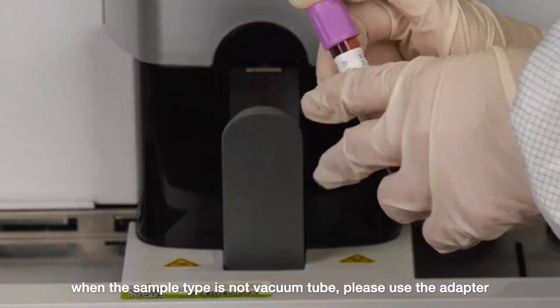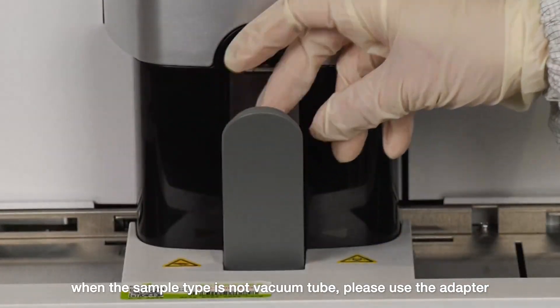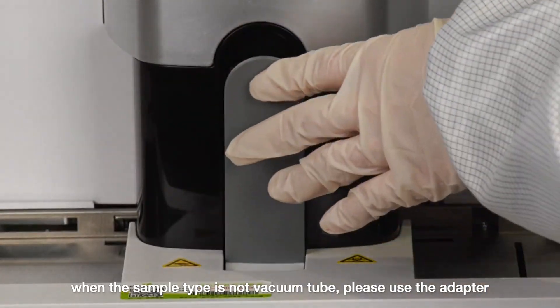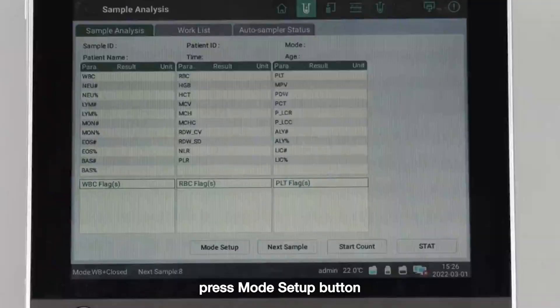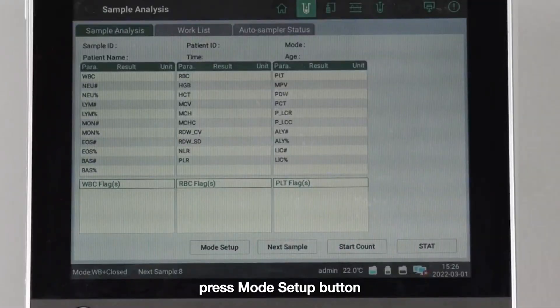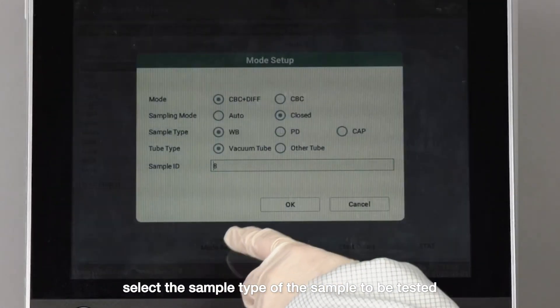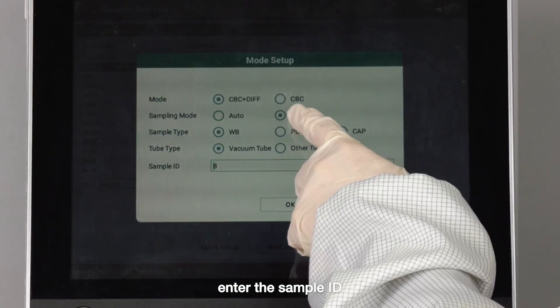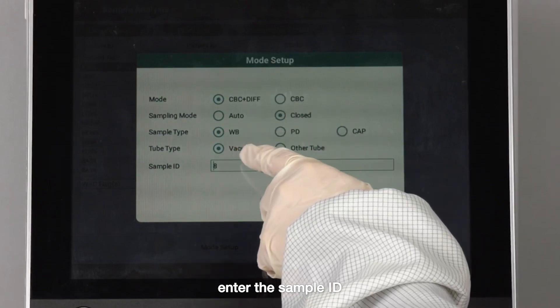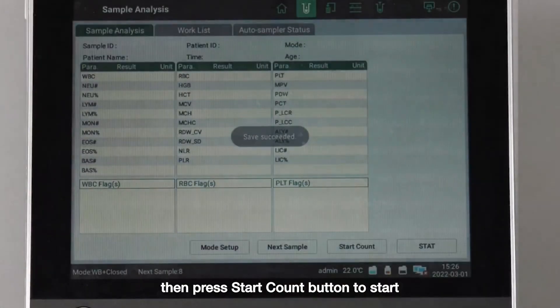When the sample type is not a vacuum tube, please use the adapter. Press the mode setup button, select the sample type to be tested, enter the sample ID, then press the start count button to start.